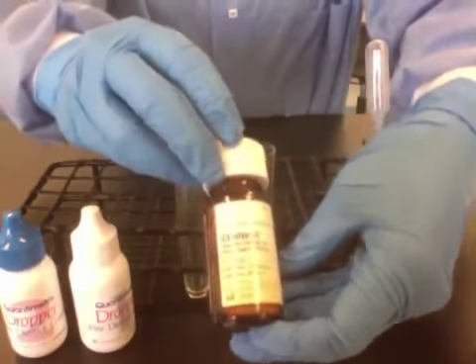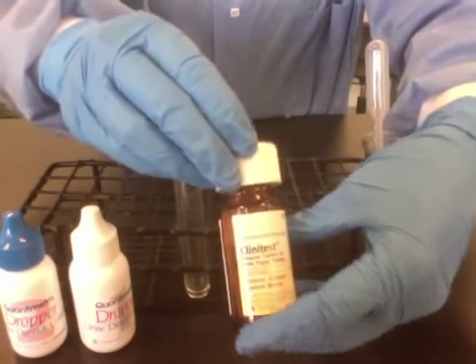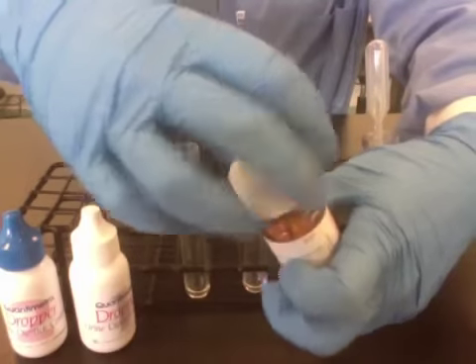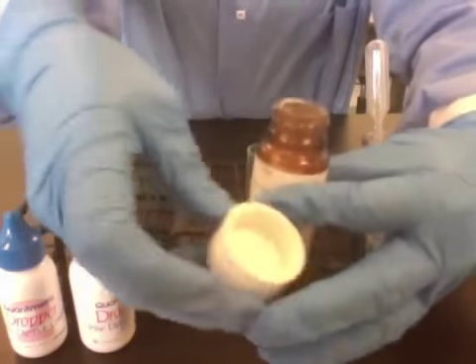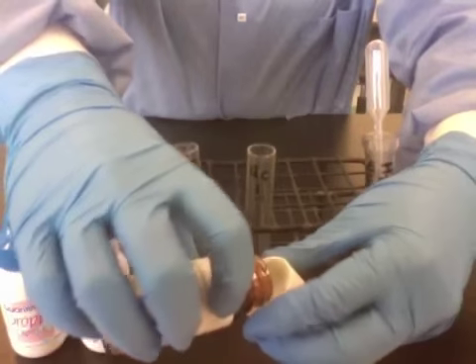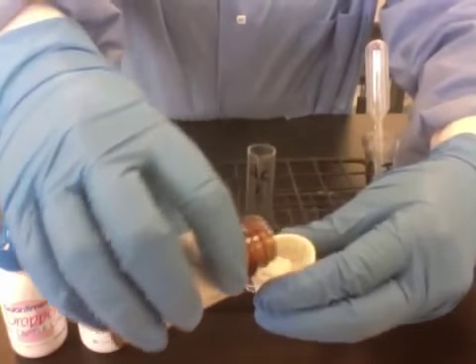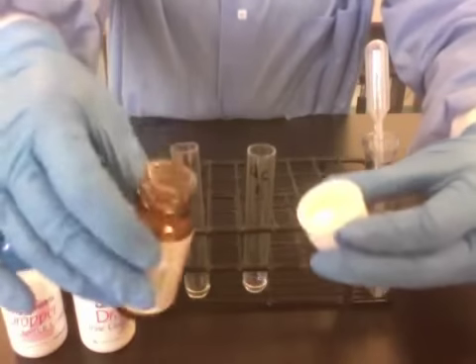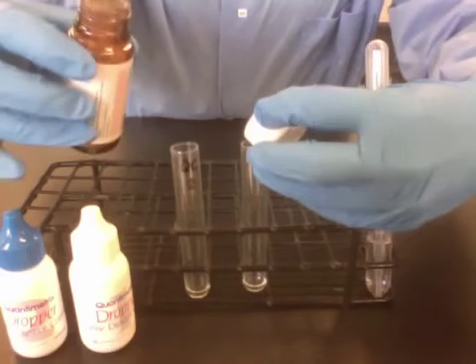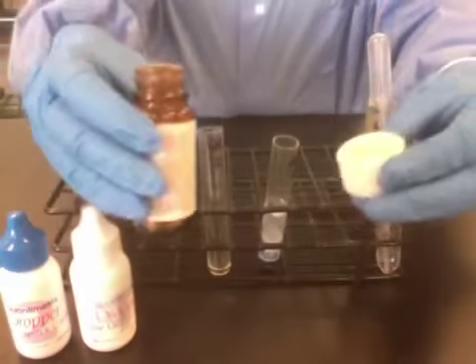Now, these tablets are corrosive and will cause burns, so it's important not to touch your gloves to them or anything else. You can shake the tablet out into the lid first for easy transfer into the tube, then transfer the tablet into the tube.